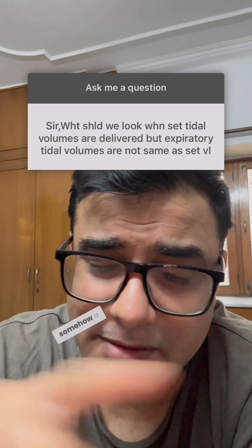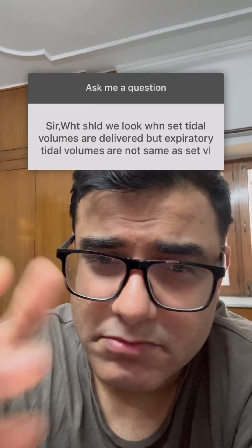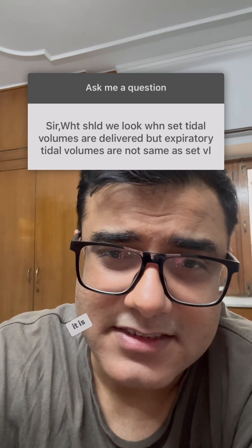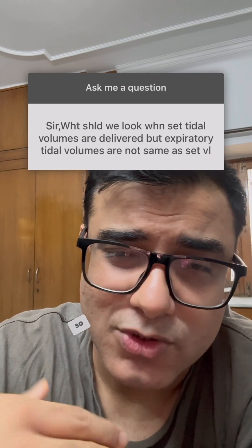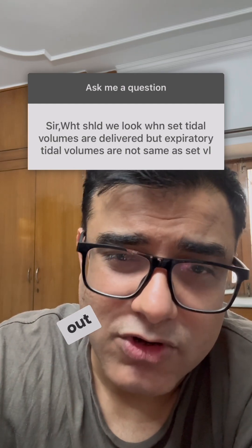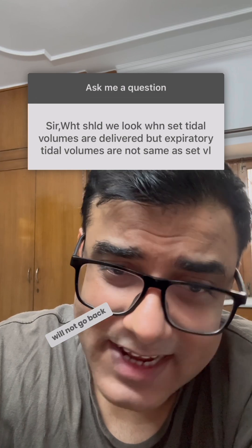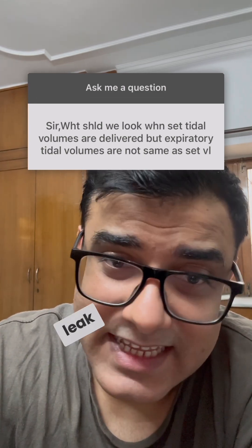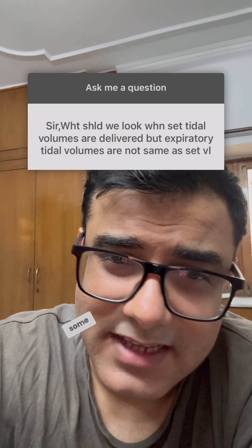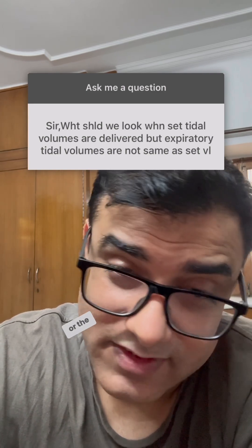If there is somehow a leak, most of the time it is because the ET cuff is not inflated properly, so air will leak out of there. The air will not go back into the ventilator. Sometimes there's a leak in the circuit — a valve is open, faulty, or the tube is leaky.